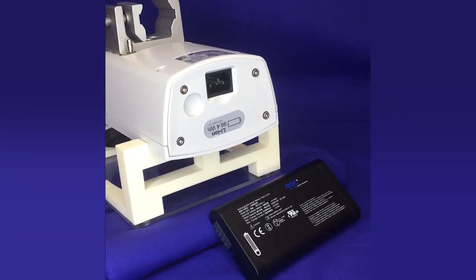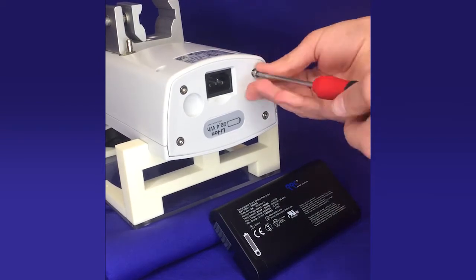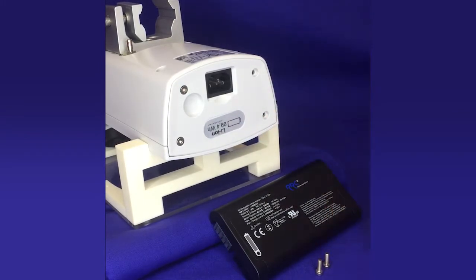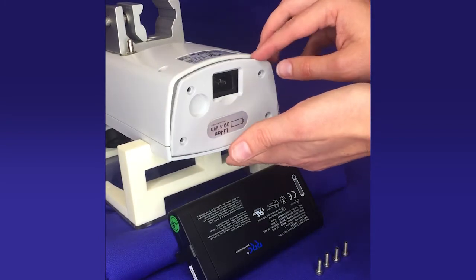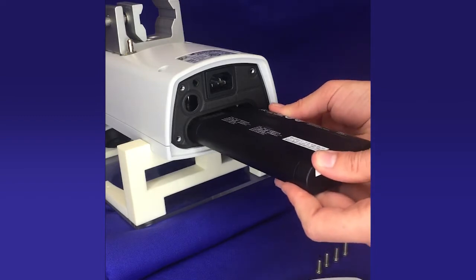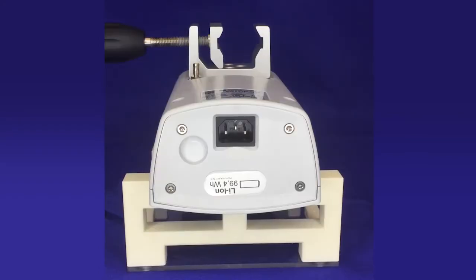For installation of the battery, unscrew the four screws at the bottom of the housing. Remove the housing part and insert the battery. To verify that the Astopad controller has a battery, locate the label at the bottom of the device — it will indicate if a battery is already in place.